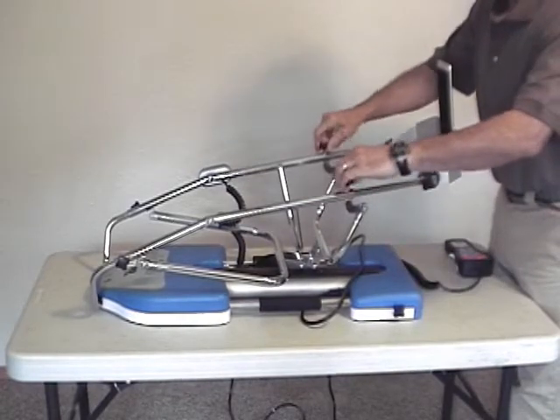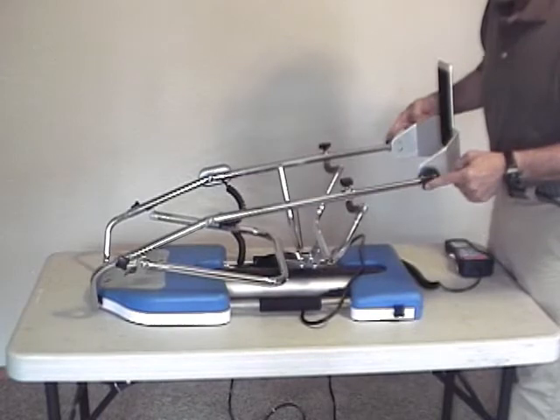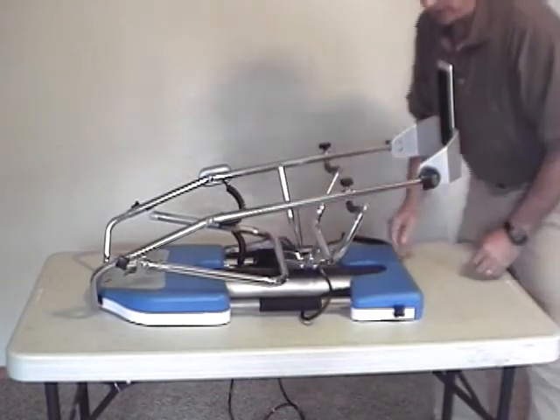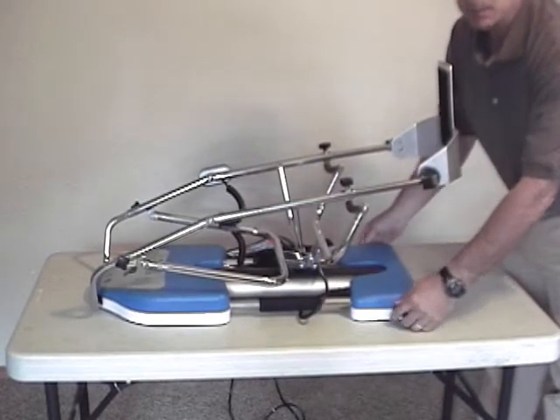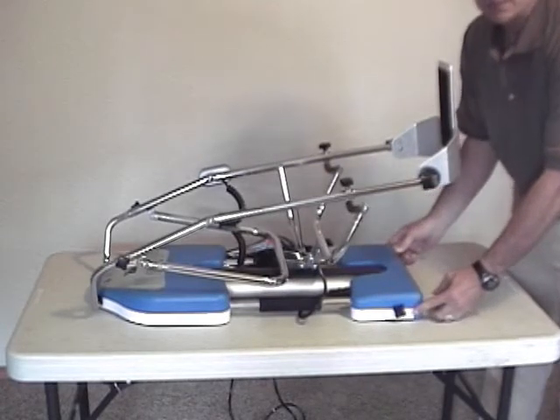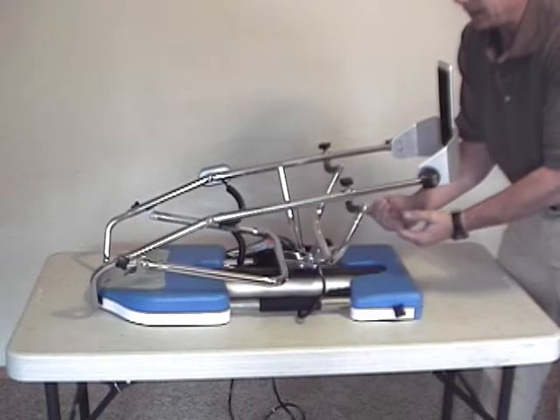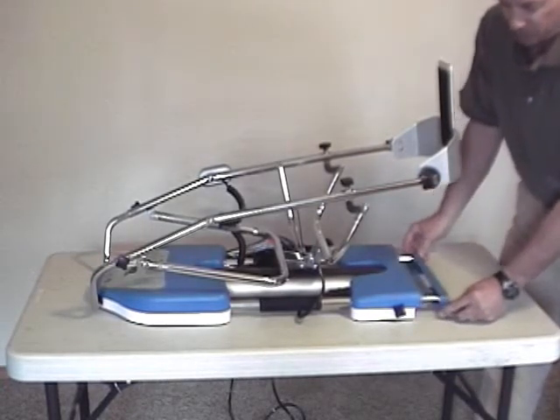Leave it slid out and tighten things down here and here. While I'm at this end, I'm going to show you one other nice feature of the RFlex. This is an adjustment to keep the machine from migrating so easily in the bed. If you've got a bed with a foot board and have any issues with the CPM migrating away from the client, this little bar here will slide out.